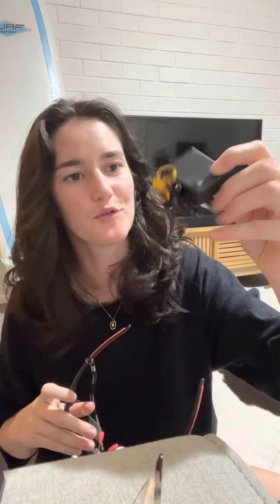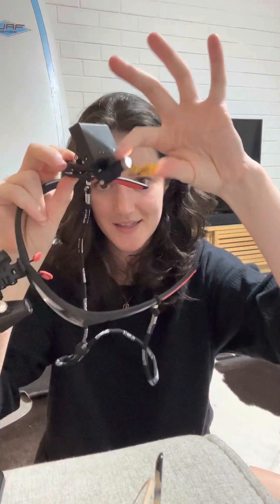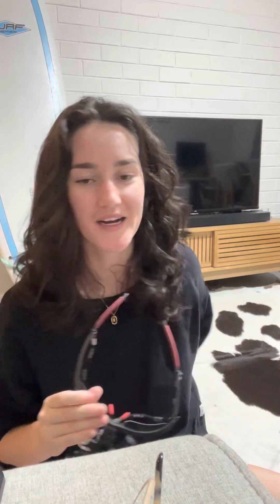The light — our brand new Optech actually has awesome lights now, so the light was sort of whatever. I got this little clip-on light, it was $40, and it's actually pretty awesome. It's even got the nice little composite curing cover to slow that down. But to be honest, I didn't use it that much, so I think that's not as much of a benefit. These loupes did come with LED lights with a cord. I found it super annoying, so I'm really glad I actually tried it out in a cheap version because if I invest in expensive loupes, I won't be using one with the cord. It is so annoying — I got caught in my hair, got caught behind me on my chair, I was just getting that cord hanging everywhere I walked around.